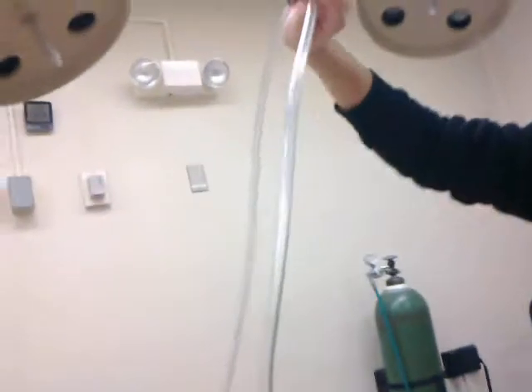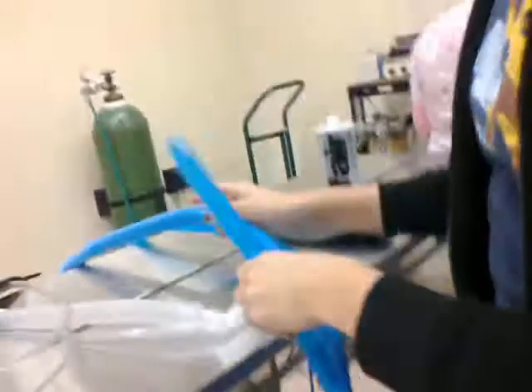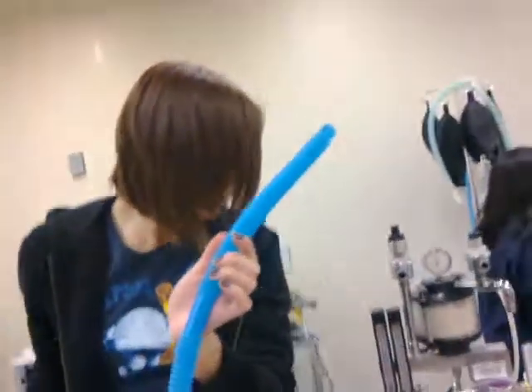The non-re-breathing circuit also has its own line from the oxygen tank, which we'll go over. And then we have the scavenger system tubing — that's the scavenging system tubing. We also have our re-breathing test and our scavenger system.